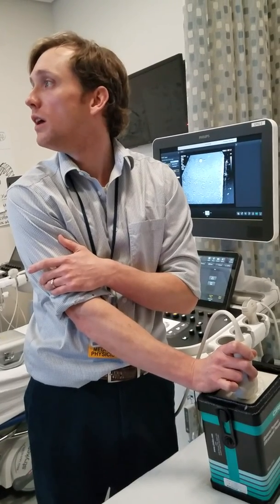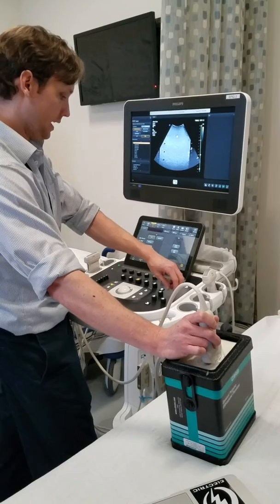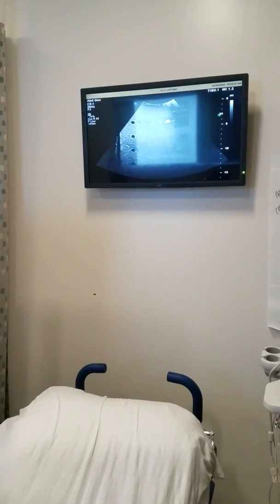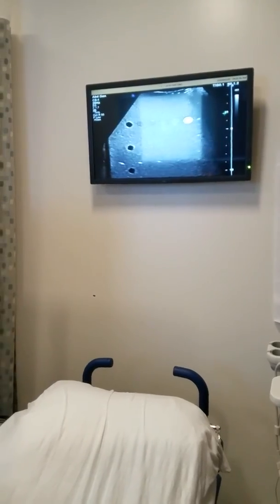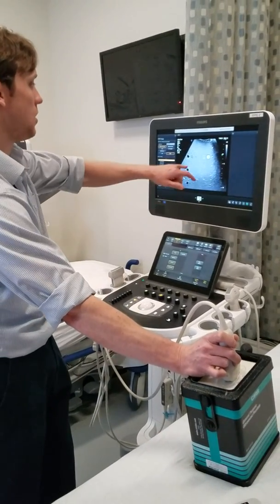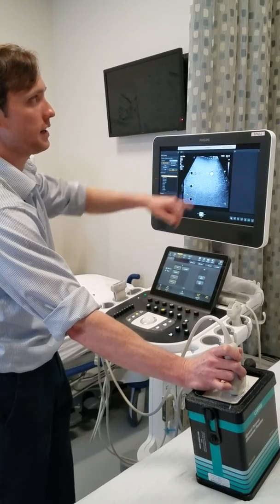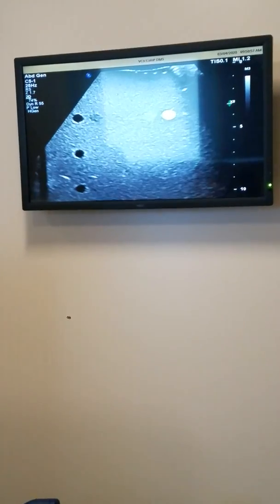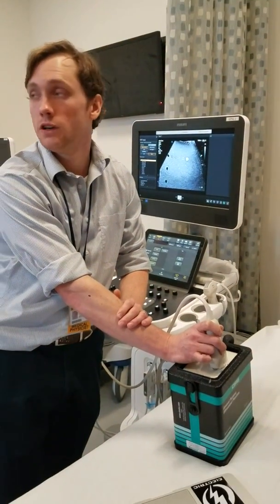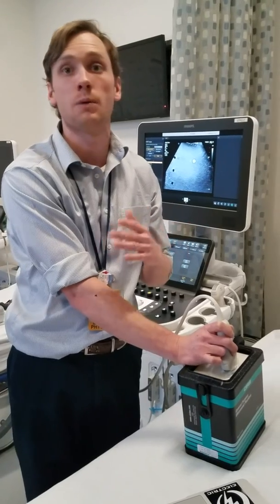So we have vertical, horizontal, and then contrast resolution. Let's look at the contrast resolution. I'll zoom back out and go up to the test objects we're trying to visualize, then zoom in. We're trying to see what we can see. Generally, most of the time I'm able to visualize all of them, with the exception of one. All the other ones — depending on your monitor brightness, if you move it around — you'll be able to get the outer peripheral versions of your test object. For that one particular object, the plus 3 dB one, I cannot visualize it. Sometimes you can note that visualization goes in and out — barely visible.